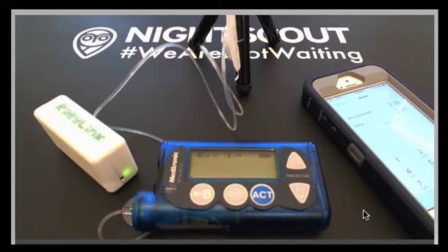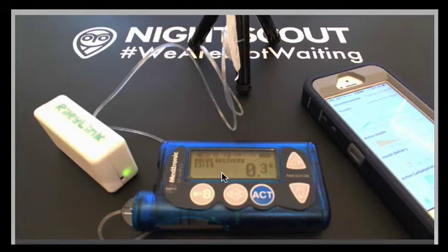My wife Colleen will deliver the bolus. It says Touch ID for loop, so she's got to put her Touch ID to bolus. She's bolusing, and you'll notice the screen has come on to deliver the bolus. The Touch ID feature is such a wonderful option that no boluses can be given without the fingerprint of the primary caregiver.